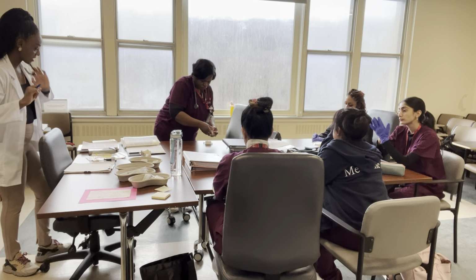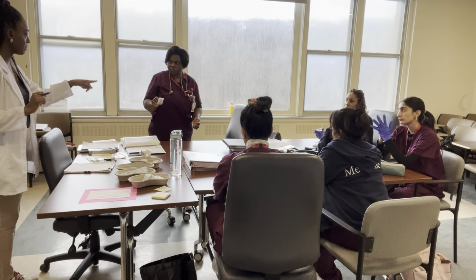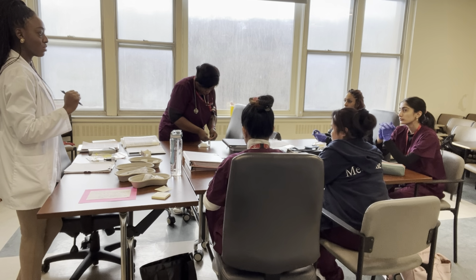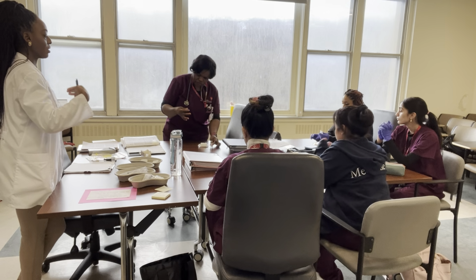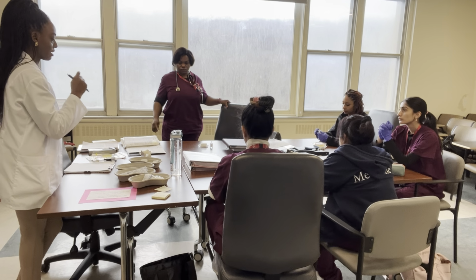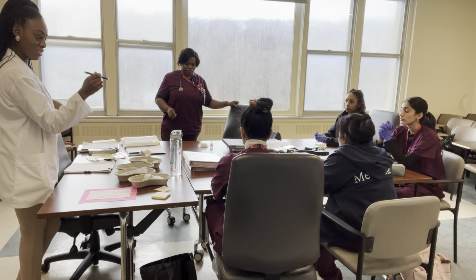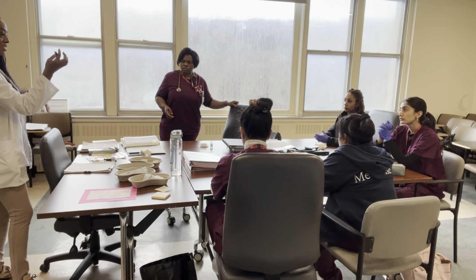This garbage? No, that you're going to keep. Right, you get your practice. So the vials are for you to practice. If you throw it in the garbage, I don't have another one to give you. So I give it as a practice for you. It's yours. Good? So I use my pen as practice because it has a little plunger.